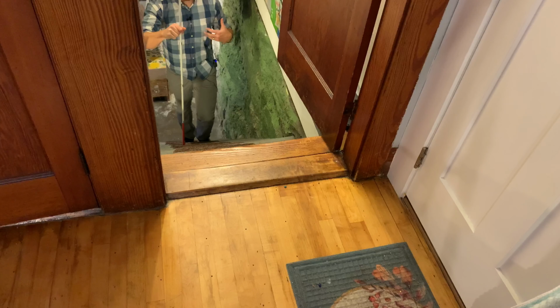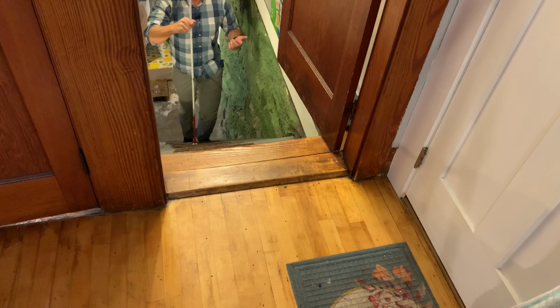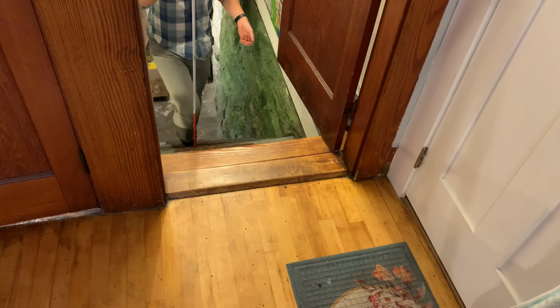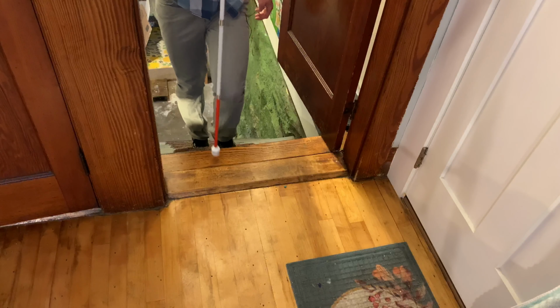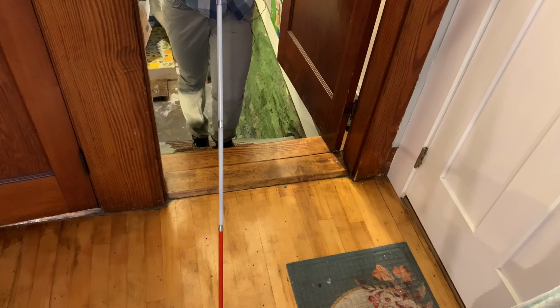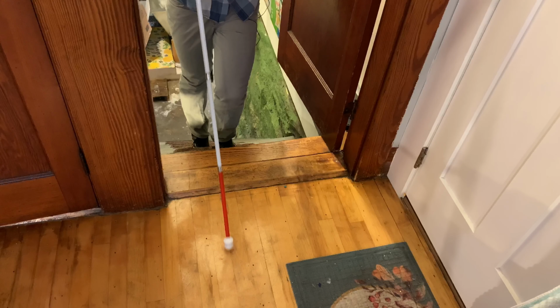And finally, for step number 9, when you're walking up the stairs, eventually you're going to come to the top. So when you come to the top, I'm walking up the stairs now, my cane tip is still hitting the lips. When you come to the top of the stairs, when your cane finds the landing, the cane's just going to swing out in front of you. And that's how you know you're at the top of the stairs. And once you do that, I like to have you sweep the cane left and right just to make sure the top of the stairs are clear. There's no one standing there, a box or something like that.